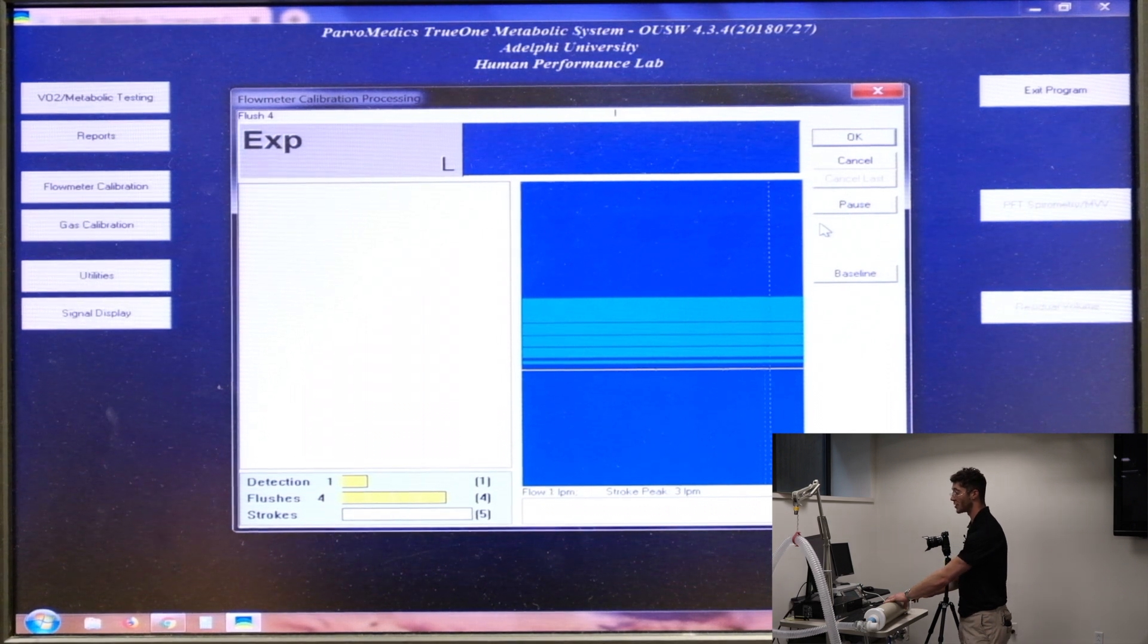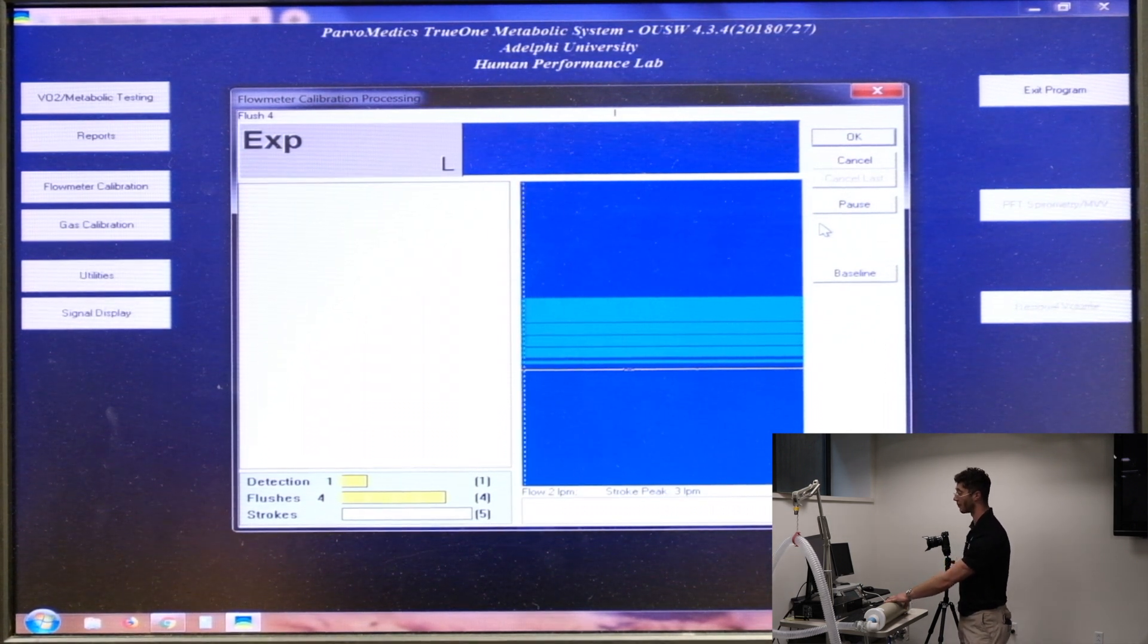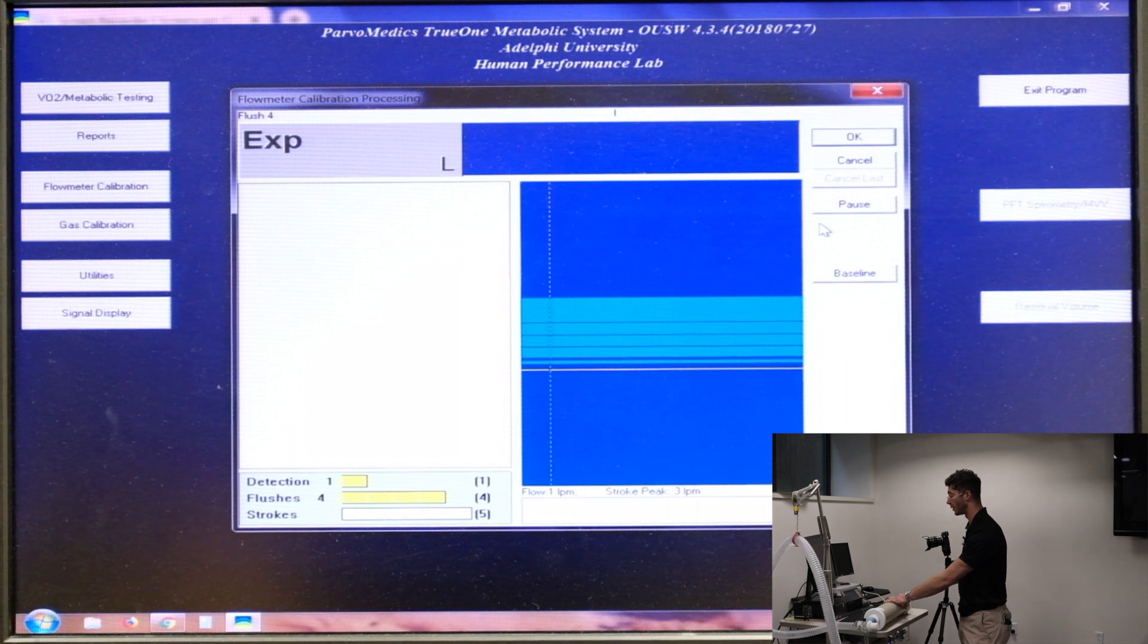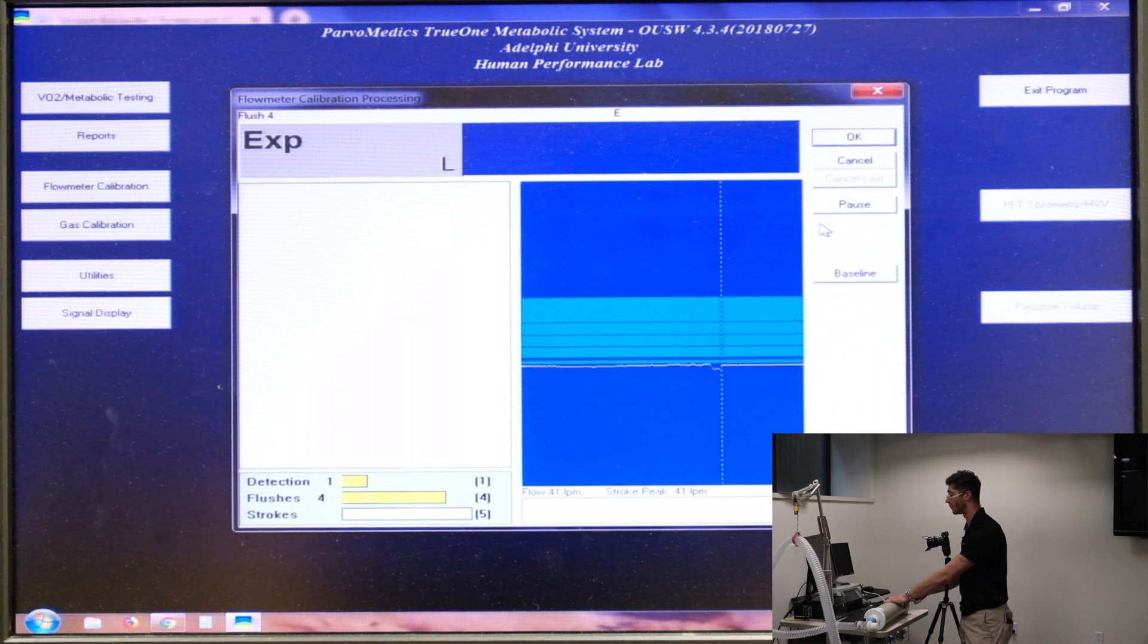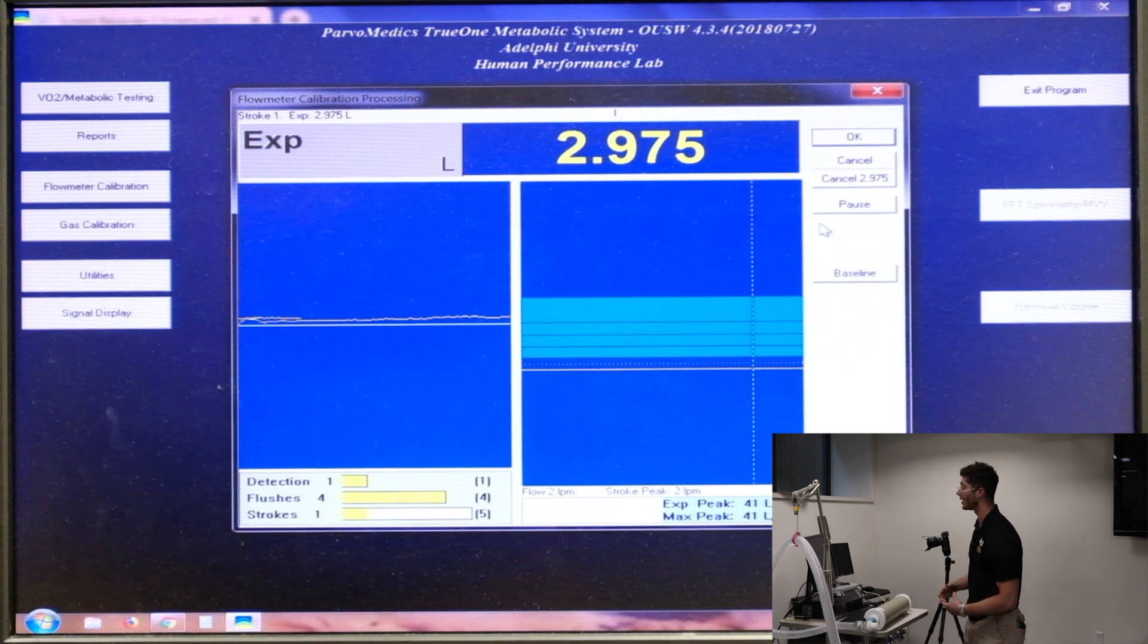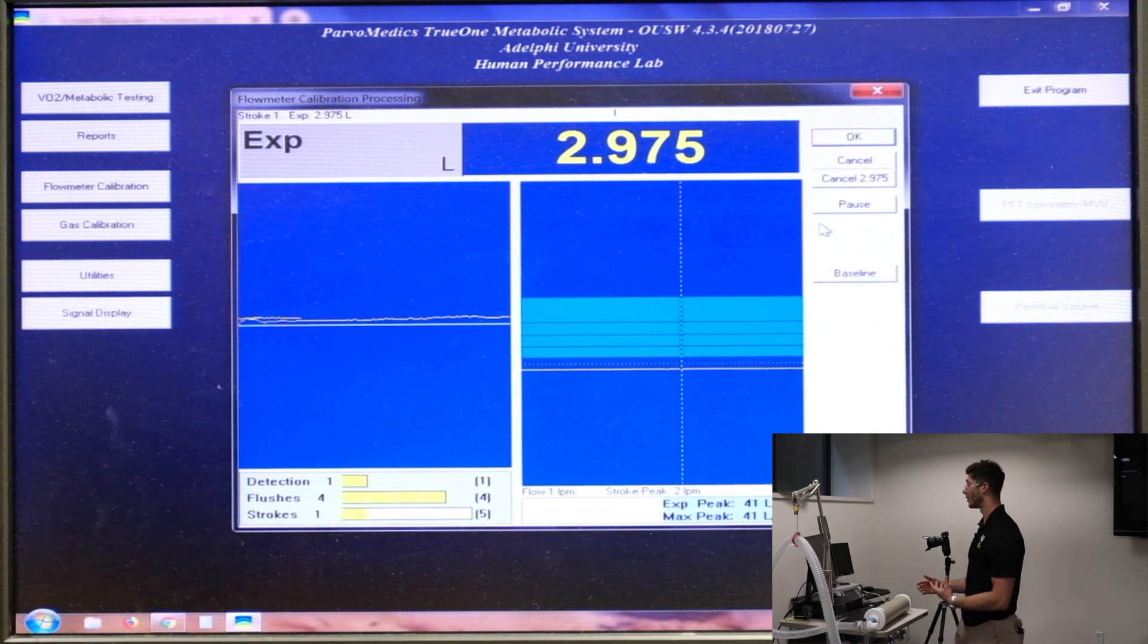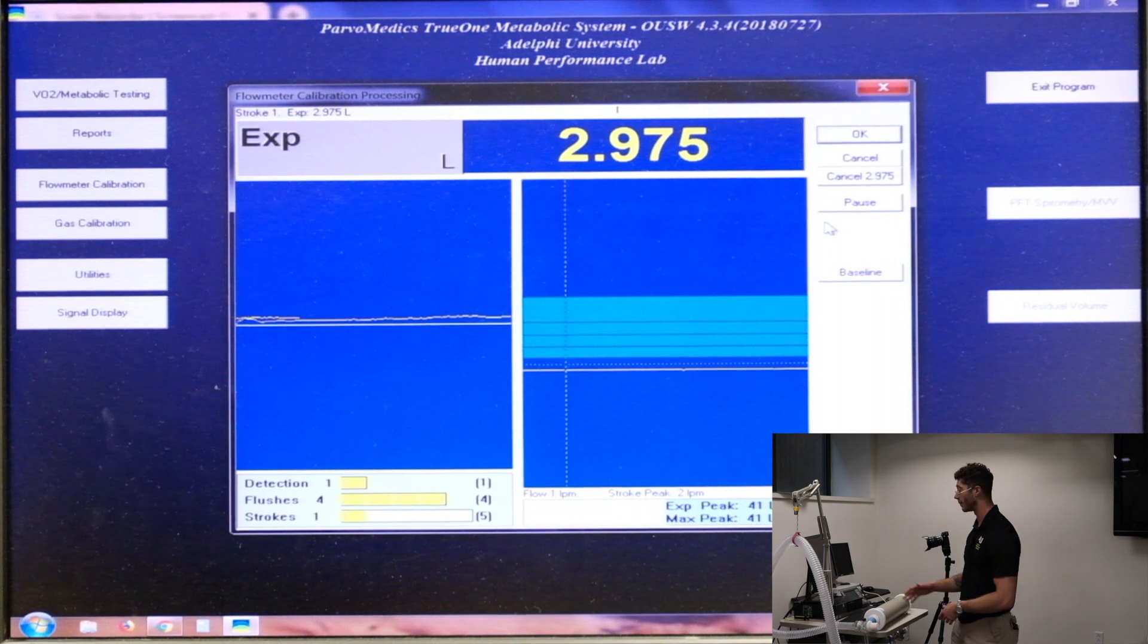So the first is going to be the slowest. And we're trying to clear the bottom blue line on the right side of the screen. As you can see, the slower I go, the lower it's going to be. And I'm just trying to stay within that line. As you see on the top right, there is a number. That's the amount of air that registered going through the system.